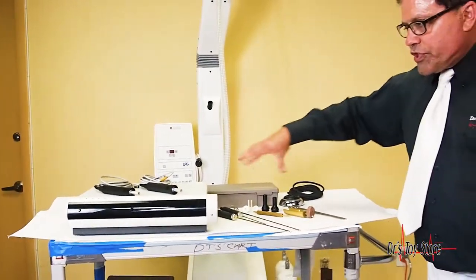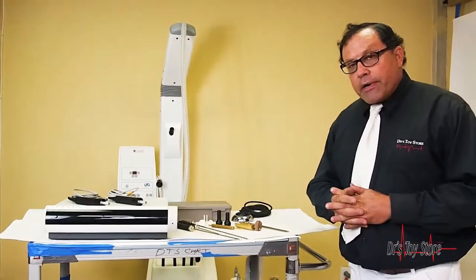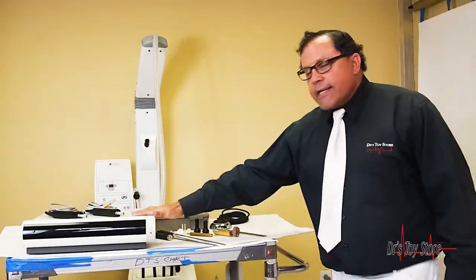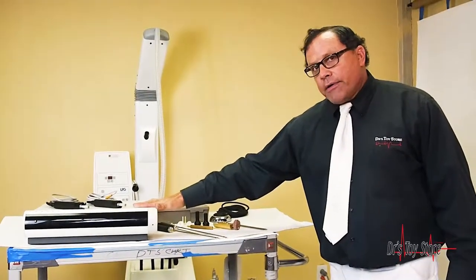Everything right here, if you want to ship, is going to be smaller. A lot of doctors will fly it from South America or Europe, and they'll just take this in a box and take it right back home.